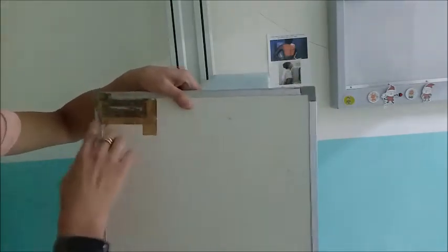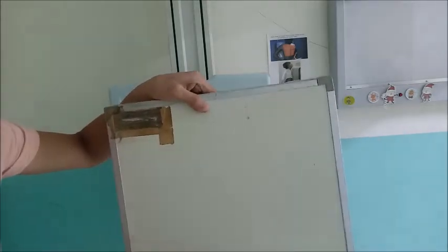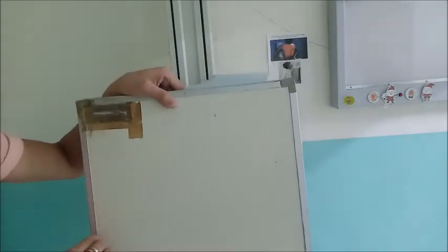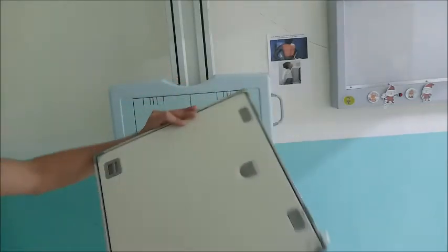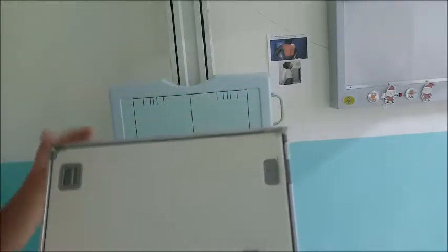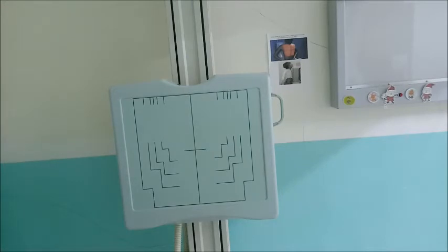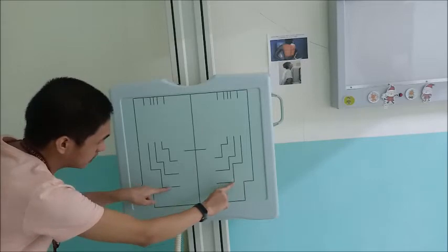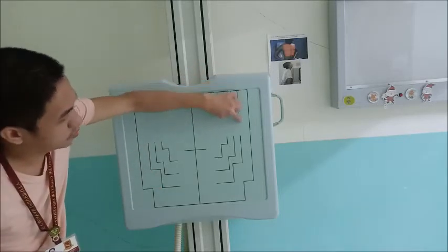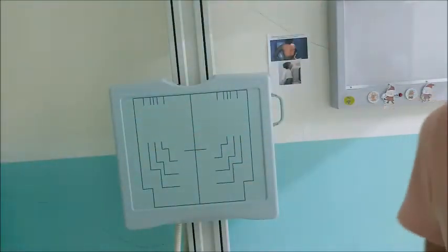Okay, so again, this is the cassette. The film is inside, so that means the film is smaller. The white portion is where the film is. The metal parts do not reach the film. If we open it, there are still spaces that the film cannot take up. So that's why we adjust it. The 14 by 14 is this one, the inferior portion, and then the lateral portion is this last one. So it will form a square. Once you know where your cassette is, then you can set up your collimation.